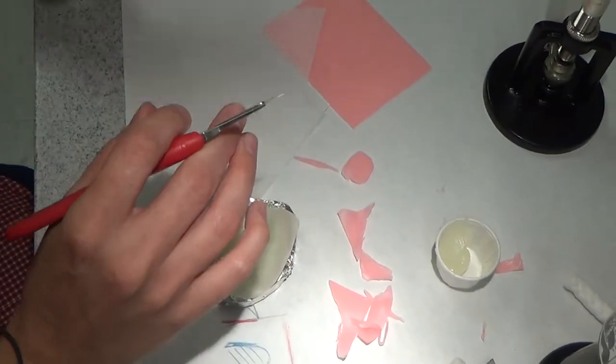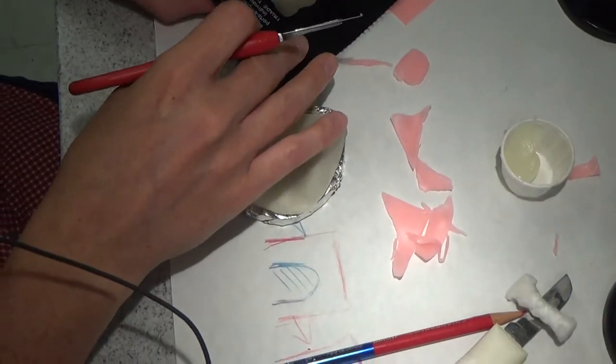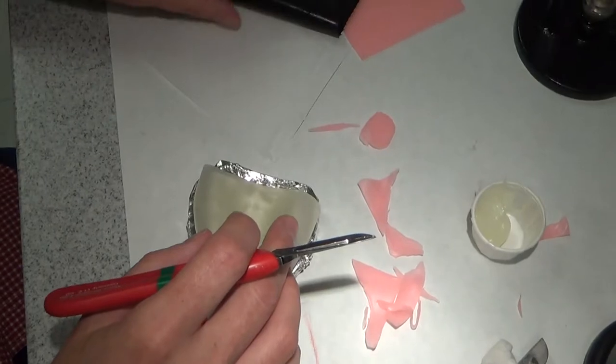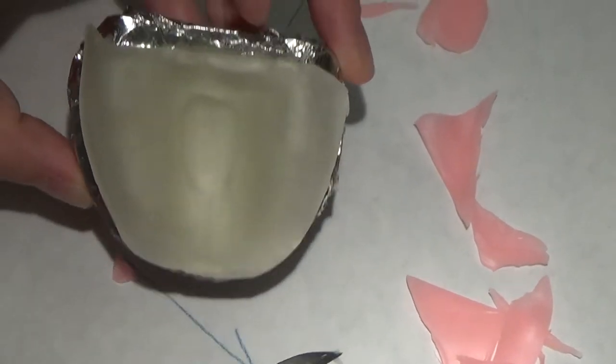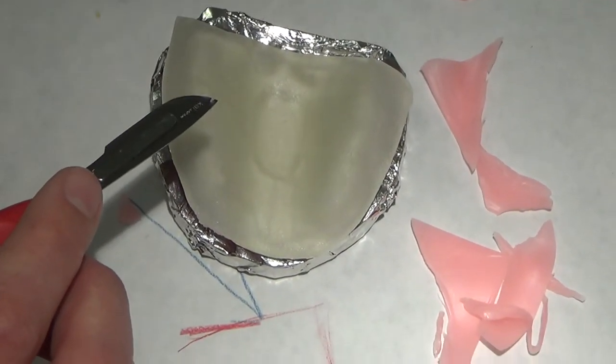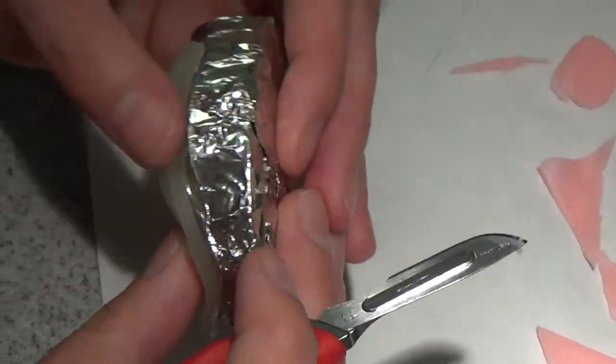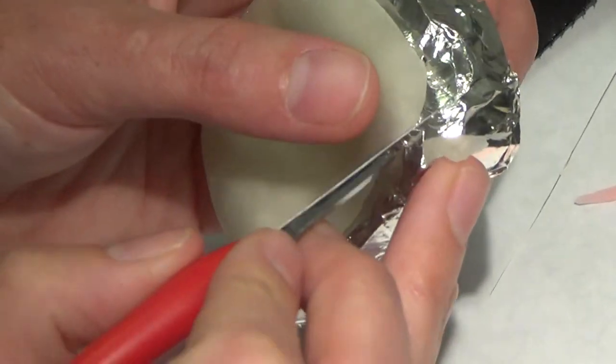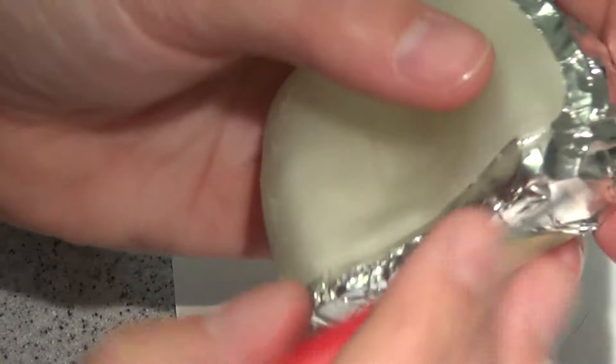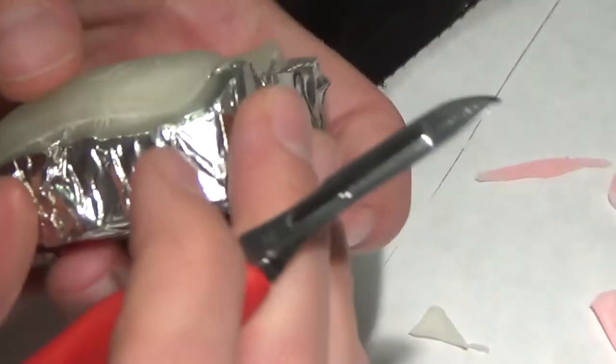I'm going to save this for my tray handle. I like to go ahead and just hide it under that so it stays pretty well covered. I got a piece of wax in there I want to get rid of and it doesn't want to stay. So I'm looking at my borders. I'm going to kind of come in again. Water on your fingertip is good. It helps to keep this from cracking and helps it to blend a little bit better.